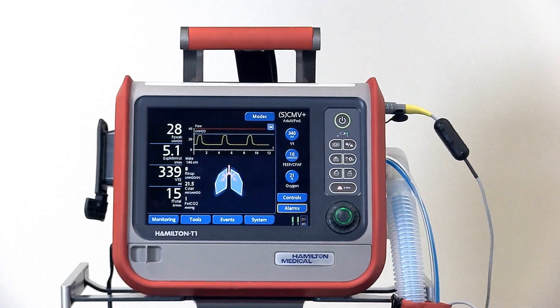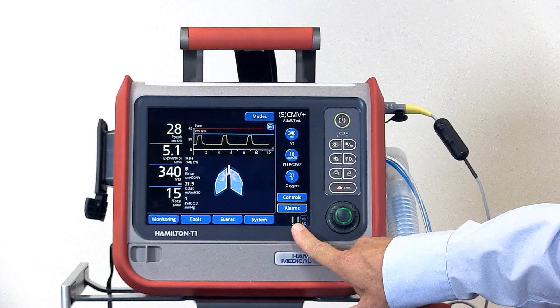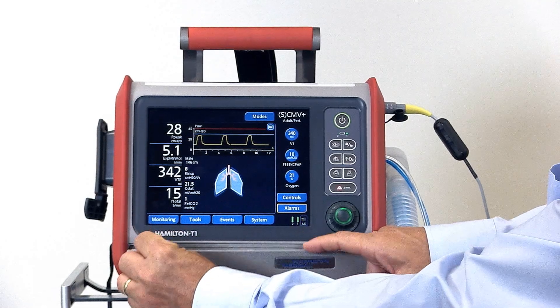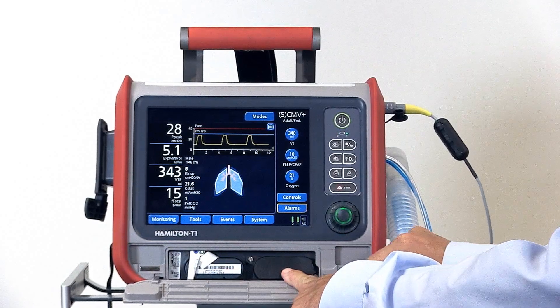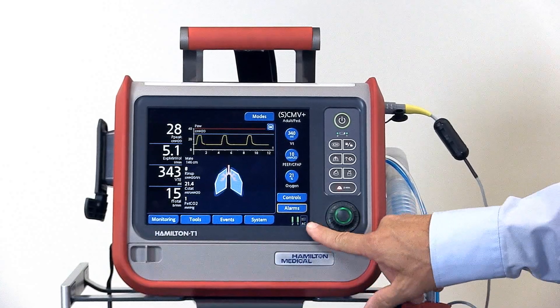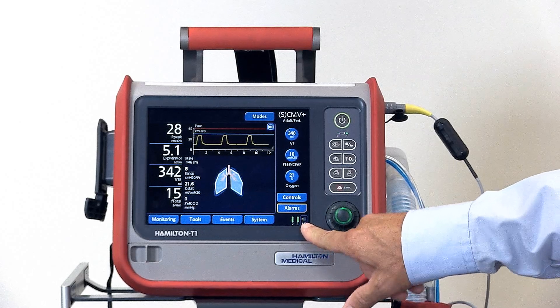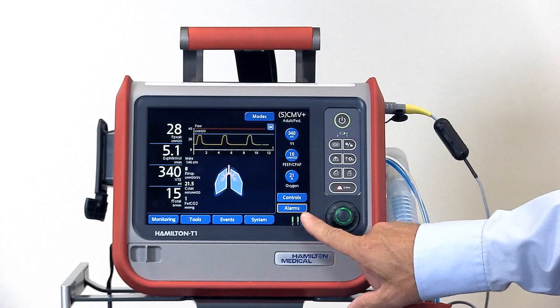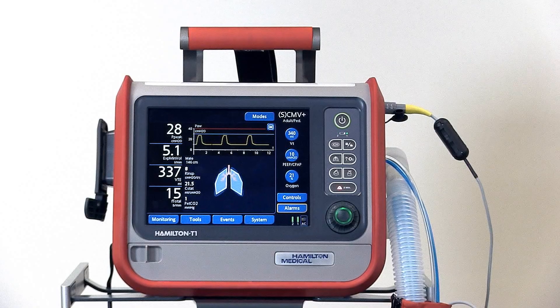Below the alarms tab, you'll see the battery charge indicator with separate indicators for battery one and battery two. Battery two is the hot-swappable battery; battery one is the fixed battery. We can tell the ventilator is plugged into AC power because you see a frame around the AC power indicator. If the ventilator becomes unplugged, you'll see a red X across the AC power indicator.